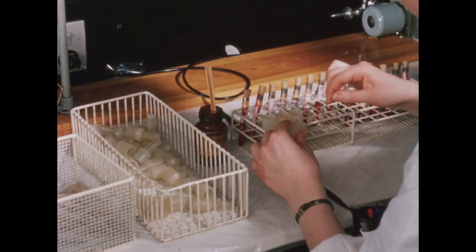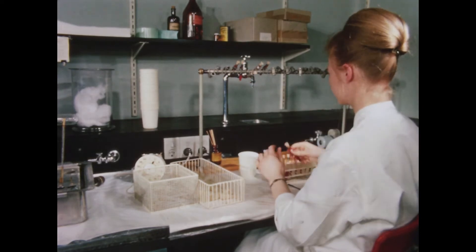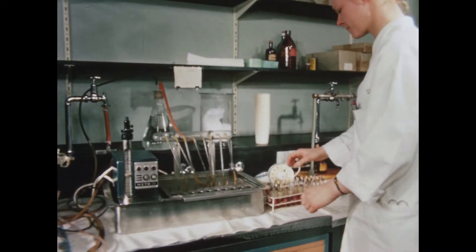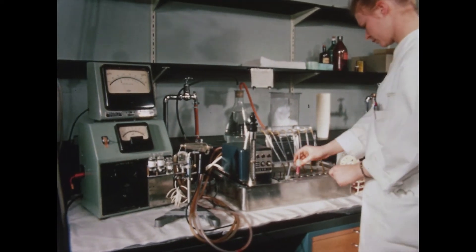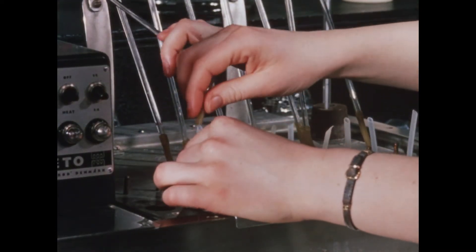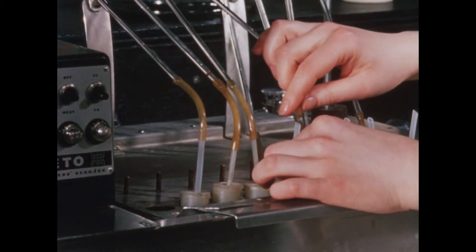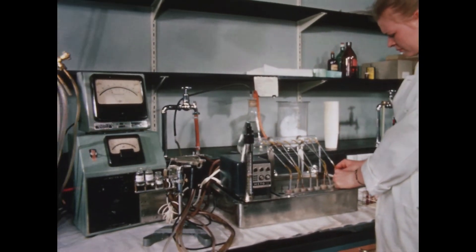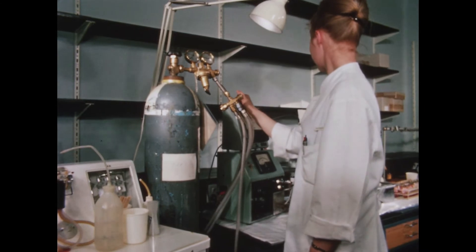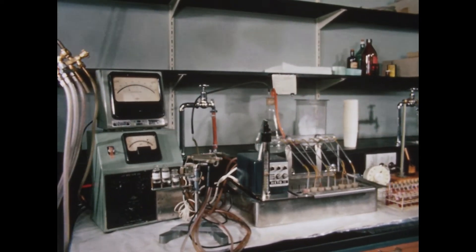The bubbling glasses are placed in a water bath of 38 degrees centigrade, and a small plastic tube is immersed in the blood and connected with a tubing system to the cylinder containing the predetermined gas mixture to be used for the bubbling. The cylinder is slowly opened and the blood sample is bubbled for five minutes, the speed of bubbling being assessed by the passage of air through water. The exact carbon dioxide tension in the cylinder is calculated daily on the basis of the percent carbon dioxide content of the cylinder and the barometric reading of the day.